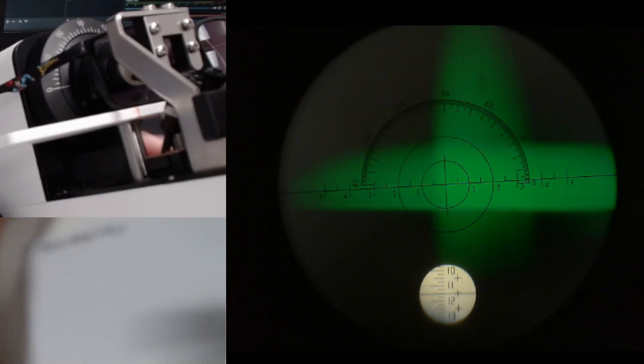Start with the prescription, the scale way up in the plus. The reason for starting way up in the plus is that we work in minus cylinder form. Starting in plus and bringing it down towards the minus end of the scale will work best for that.